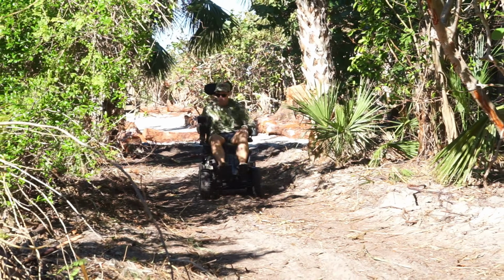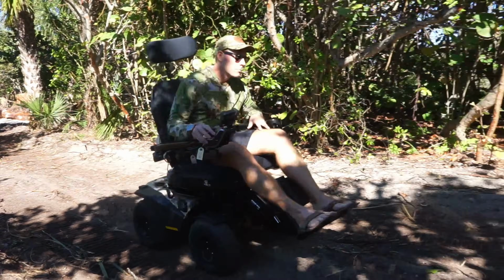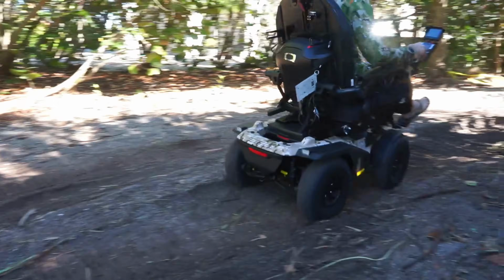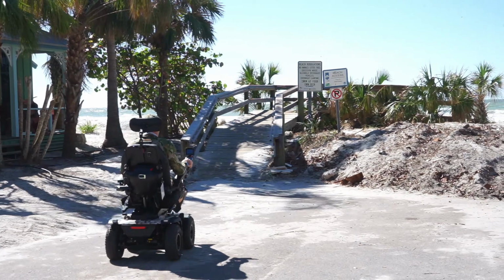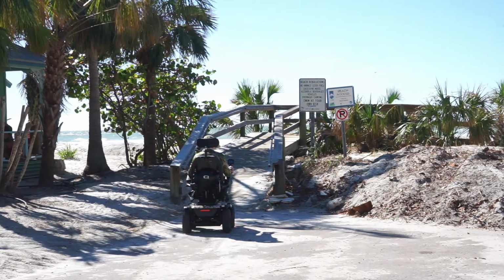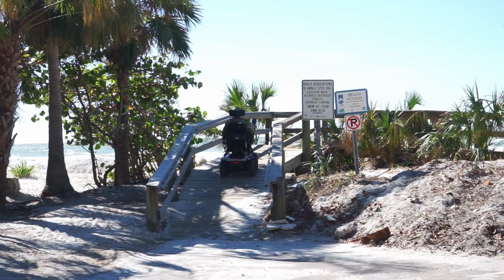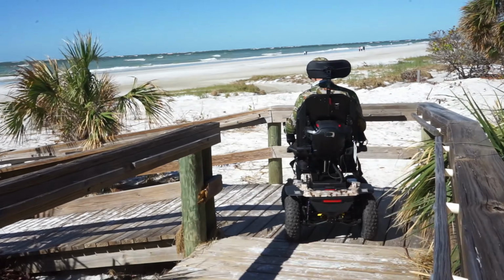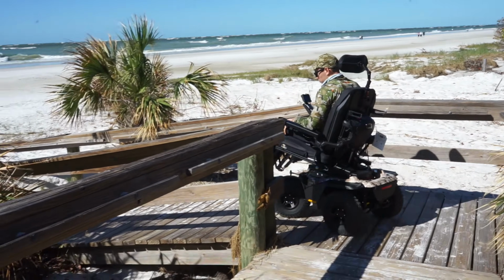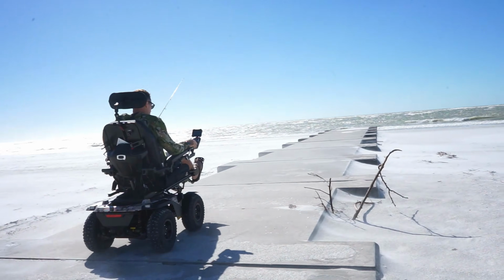We mentioned earlier how this is pretty much strictly an outdoor type chair. It has a 49.2 inch turning radius. So you're going to need over 100 inches basically to be able to turn this, and that might even be a non-conservative number. It might even take a little bit more room to turn than that. Obviously, you can do 3-point turns and different things, but just to sit there and turn in a circle, that's why we mentioned this is pretty much an outdoor type chair.